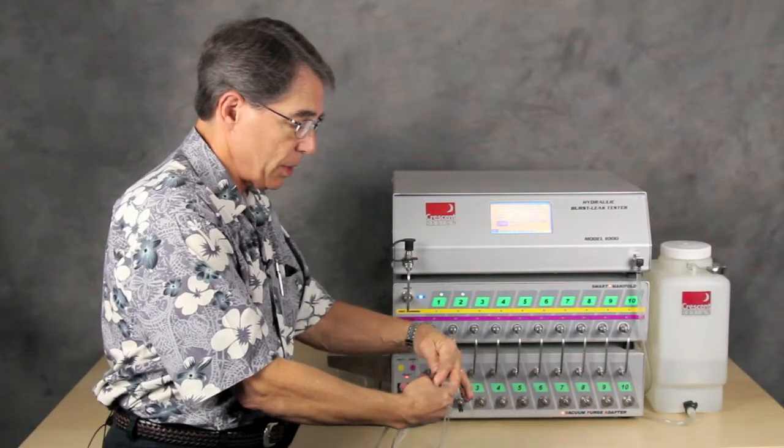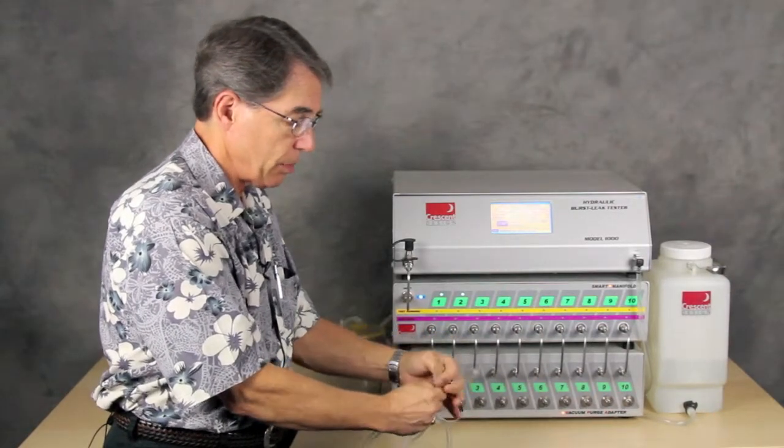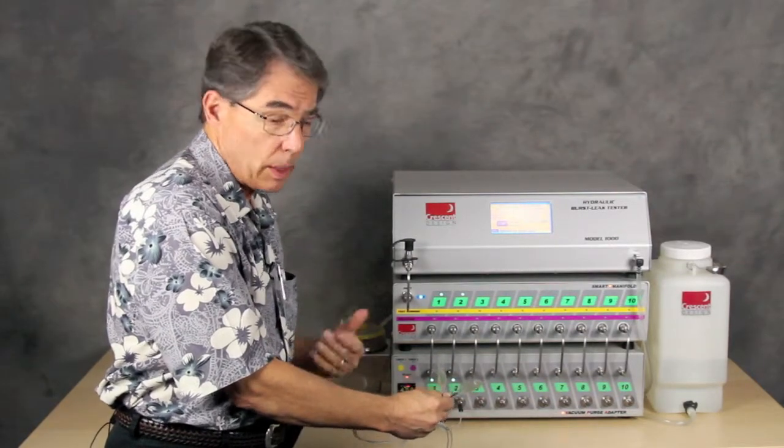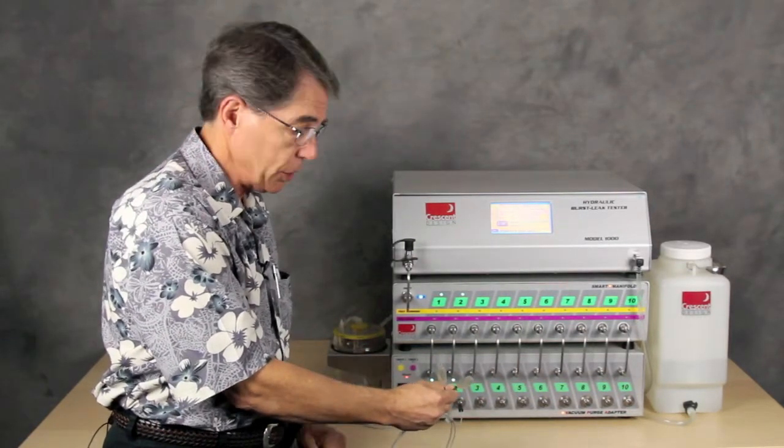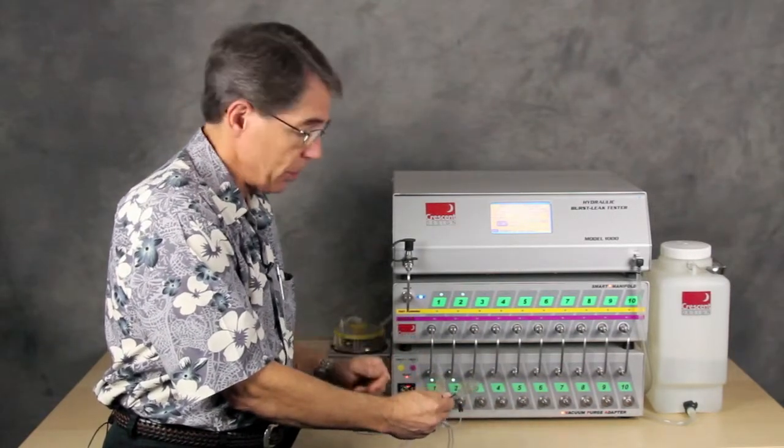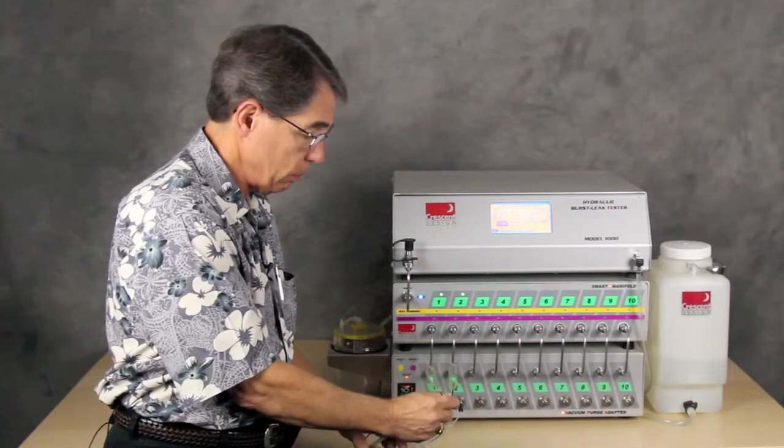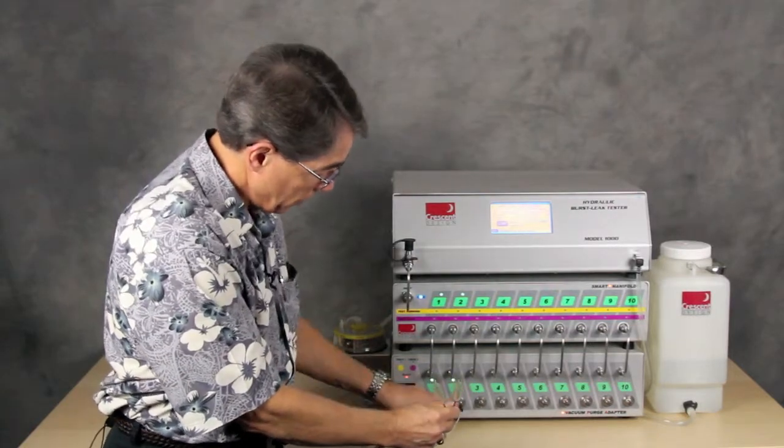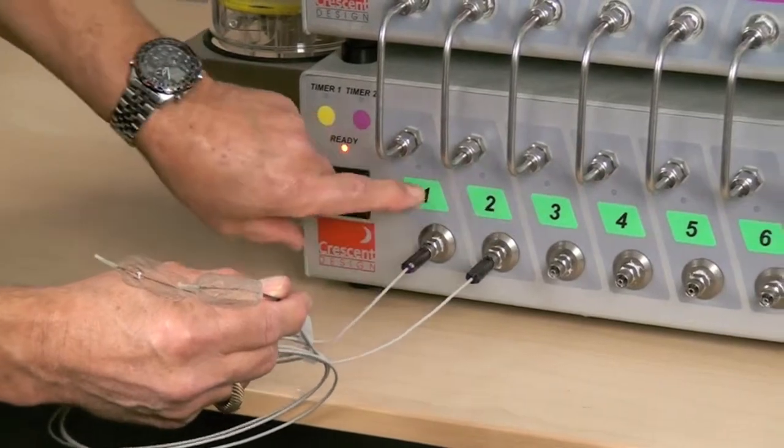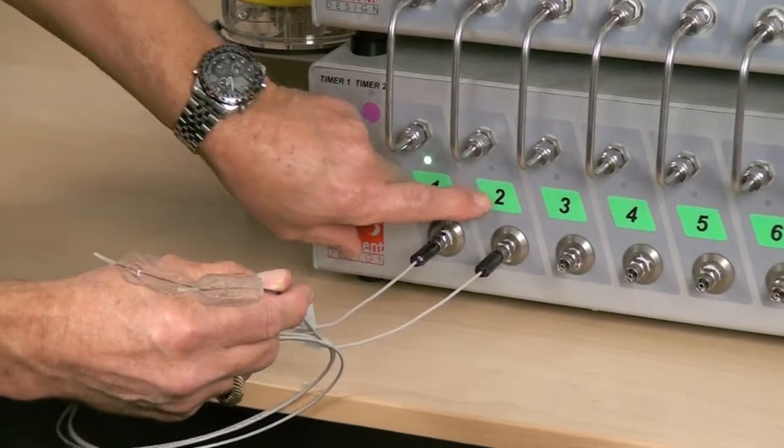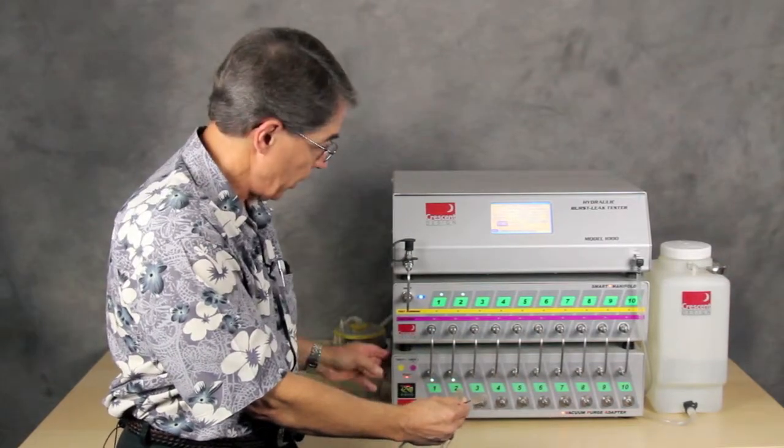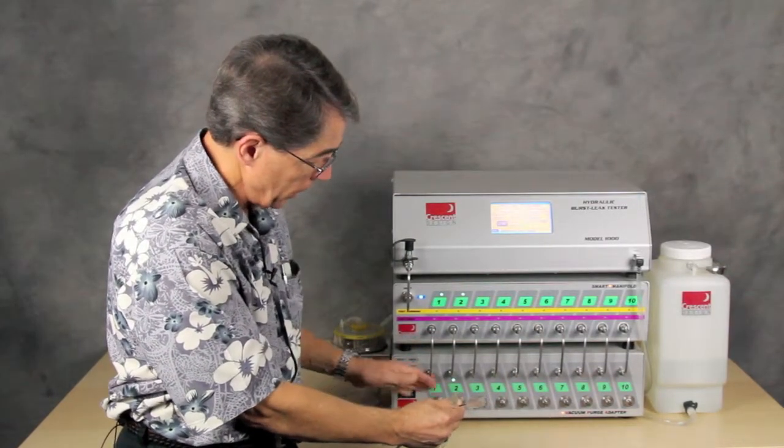The purpose of this VPA is to eliminate the need for manually preparing the catheter, however you might do it now with manual syringes. These are relatively large catheters, so I can demonstrate how it works. We have it hooked up to these two ports. And with these buttons here, I can select which ports are connected or will be connected when we activate the VPA.